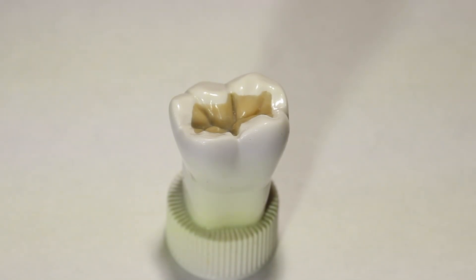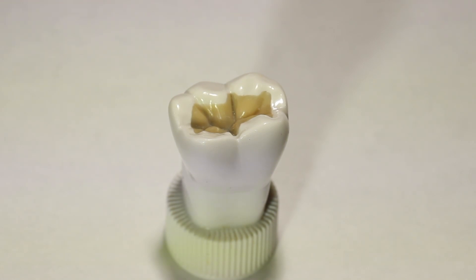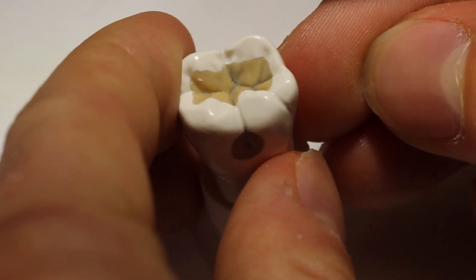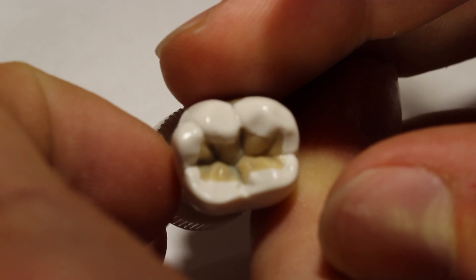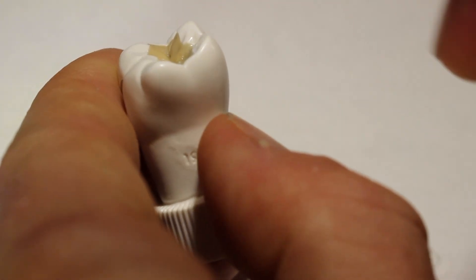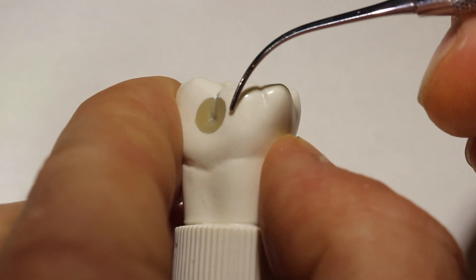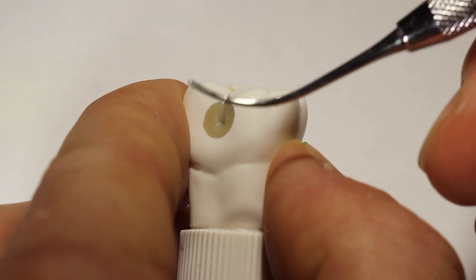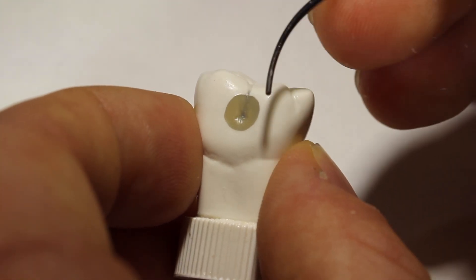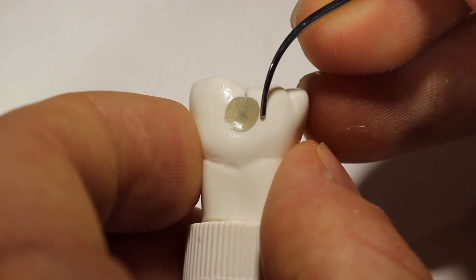The next thing I want to show you is how to analyze your work so that you can improve it while working on it and after you've completed your project. Look at your tooth in every way you can possibly think of — look at it from an occlusal view, from a mesial view down the tooth, from the distal, from the buccal. Take an instrument; I like the PKT instrument because of its smooth and non-invasive action, and you can just feel how that depression is and how far it goes.